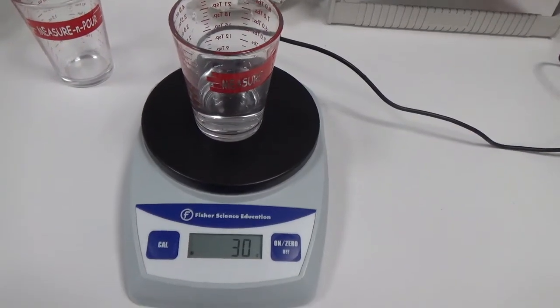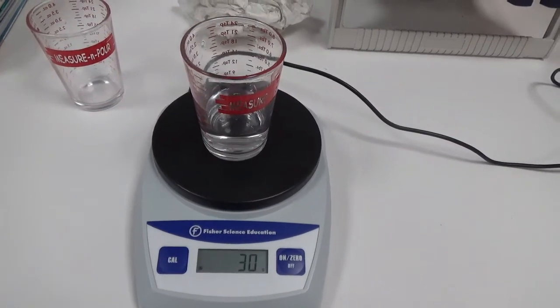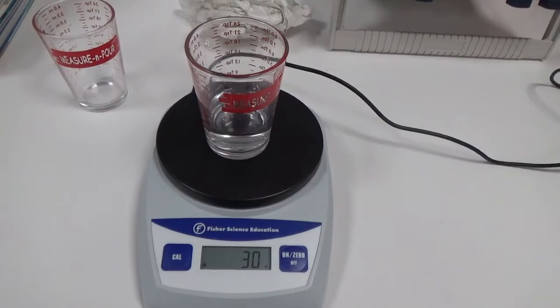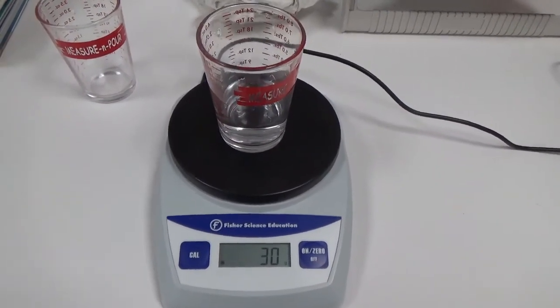Often times in hospitals, you'll find that a lot of clinical engineering teams will actually just use a scale to do their flow tests. So it's very important that you know how to do a measurement in grams to milliliters.